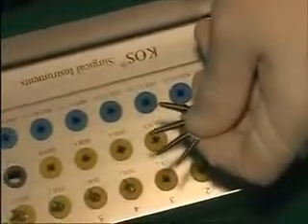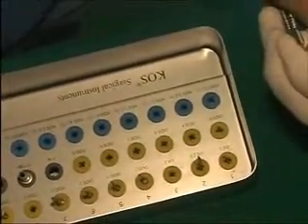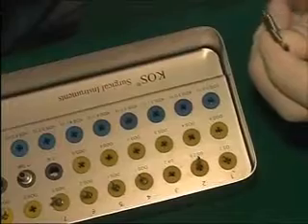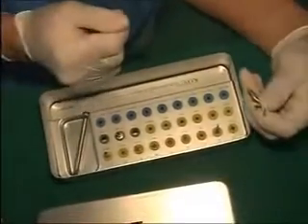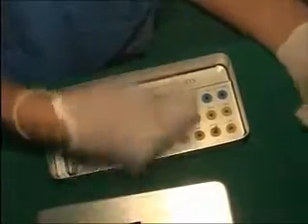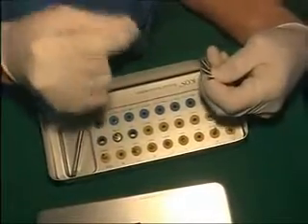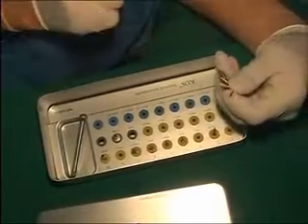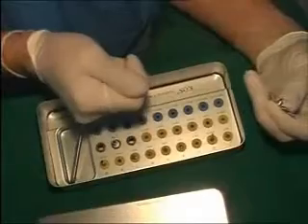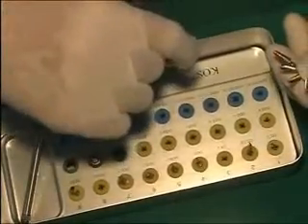If your torque is going over 45 to 50 Newton-centimeters and implant insertion is not complete, say the implant is 90-95% complete and going tighter than 45 Newtons — you won't remove it; just complete the insertion. However, in very hard marble cortical bone, if the implant is only one-third inserted or less than half inserted and it is getting very hard, use the bone expansion screw so it can cut the threads into the bone.